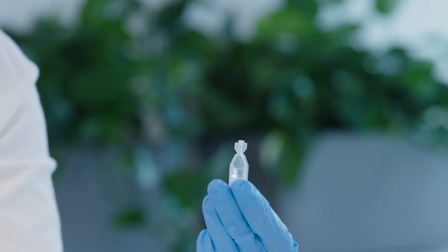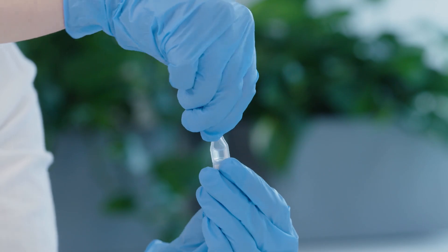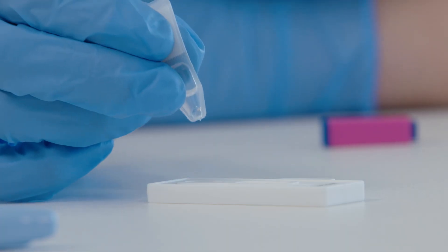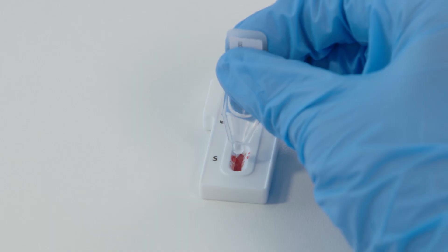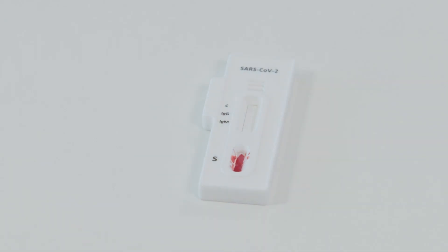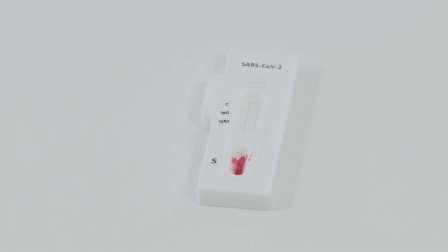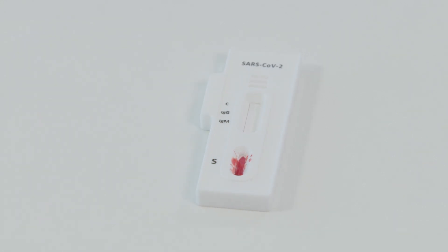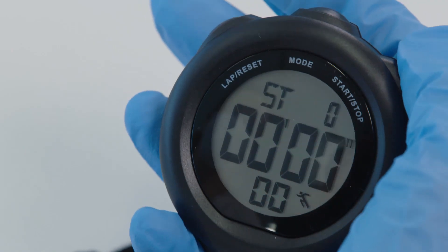Open the buffer solution ampoule and squeeze it to add two drops — 50 microlitres — to the specimen window S on the test strip cassette. Avoid formation of air bubbles in the specimen window. Start your stopwatch.